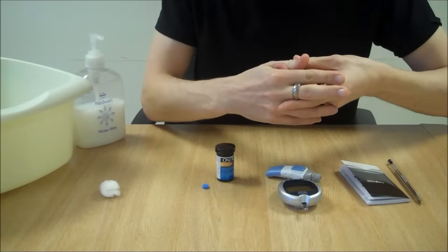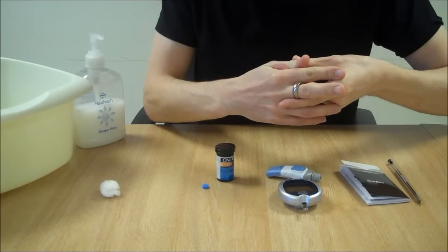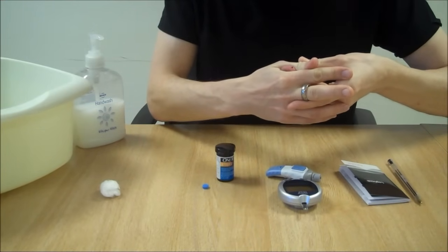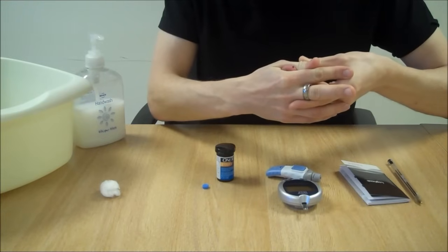Give a little squeeze. Not too hard. If you need to squeeze too hard then take another test and prick your finger again.